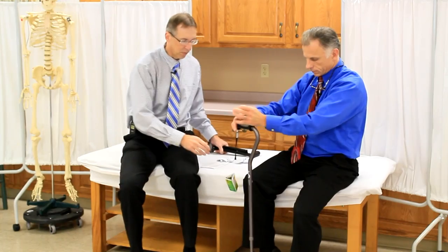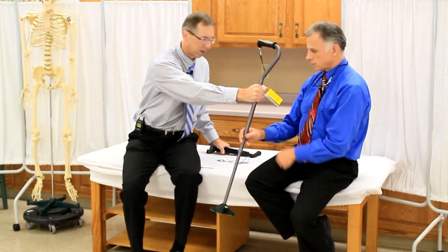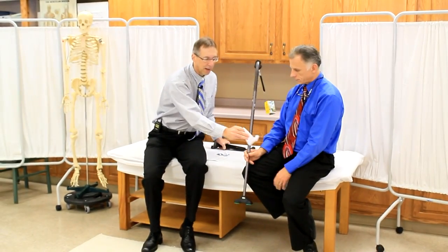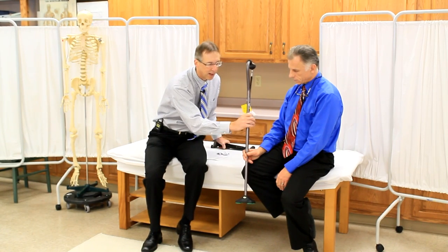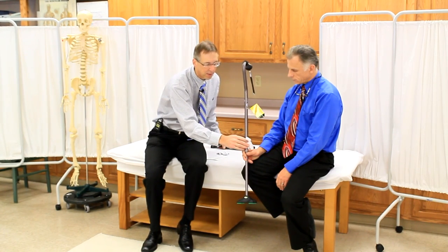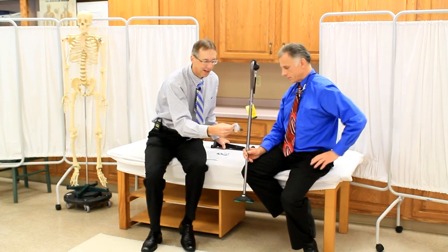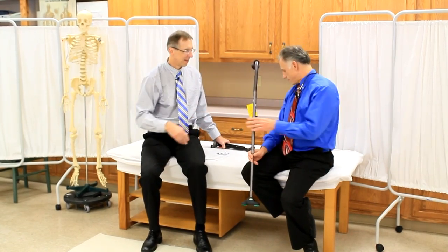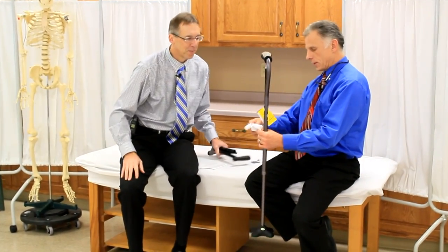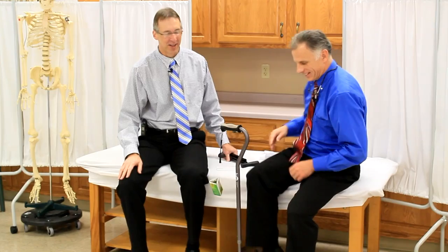On this one, my criticism was that it was all wrapped up — it came assembled in a big long box. But it had something wrapped around it that was taped on really tight in many spots, and there was just no way to take it off without ripping it up. I don't know what it is — it's probably something really important. Well, we could put it together — they used to do that in World War II, trying to get those deciphered messages.